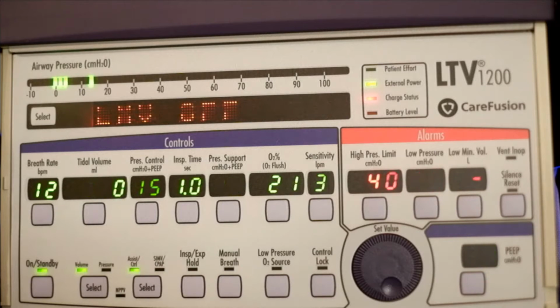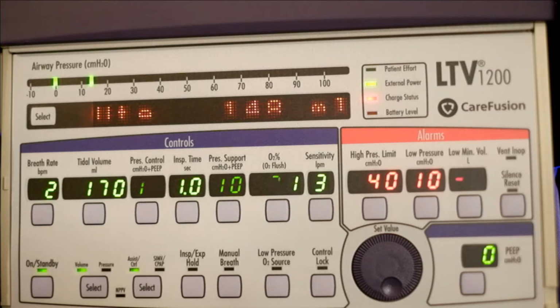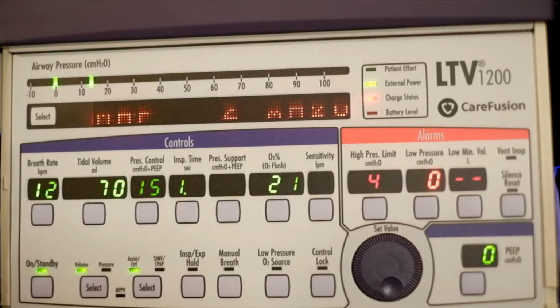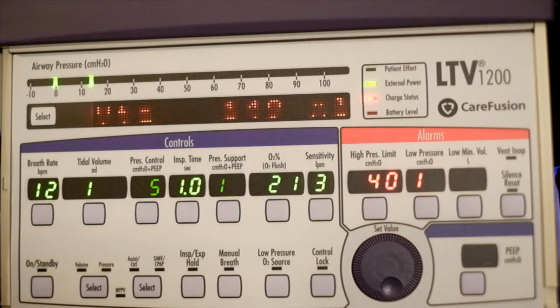VTE displays the exhaled tidal volume as measured at the patient's wye. VTE is the exhaled tidal volume. And VE displays the exhaled volume for the last 60 seconds as calculated from the last 8 breaths. So again, you want to take a look and make sure that the tidal volume matches what you set. If not, you can compensate by adding more tidal volume until the displayed amount, or what's actually being administered, matches what you're trying to give.